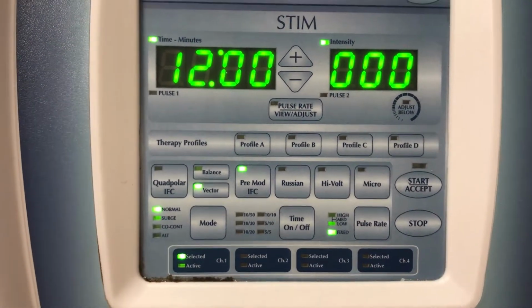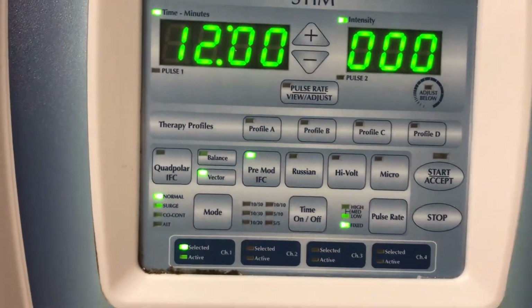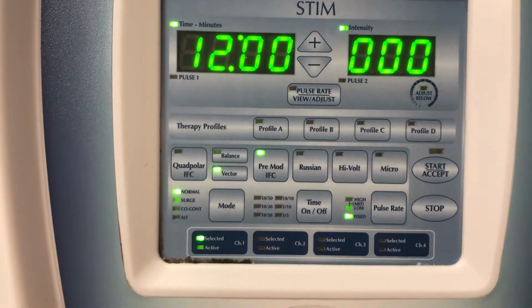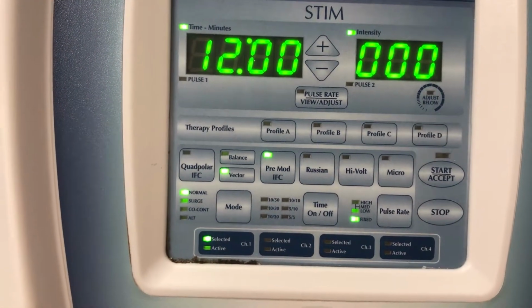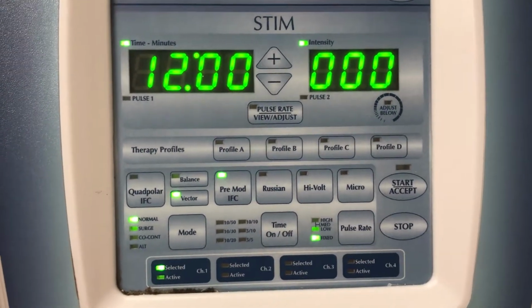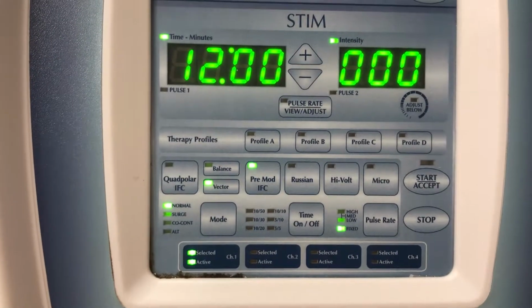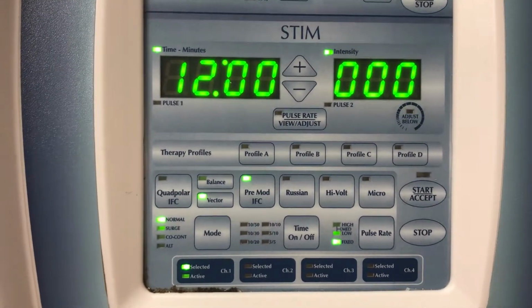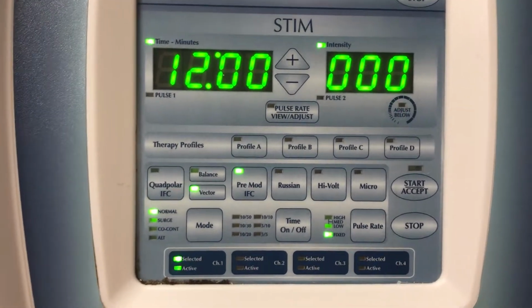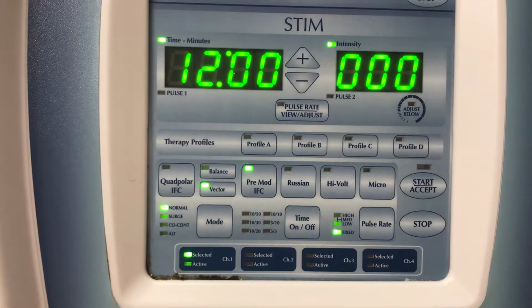Remember, the Richmar cannot adjust it. It is preset. We do have some modulation. We have vector, which is modulating of our amplitude. And ramp is another type of modulation. And again, Richmar does not have the ability to adjust the ramp. It doesn't mean that ramp doesn't exist. It's preset. I believe it's preset for at least 2 seconds on and 1 second off. But you can always look at that for your different waveforms in your manual.